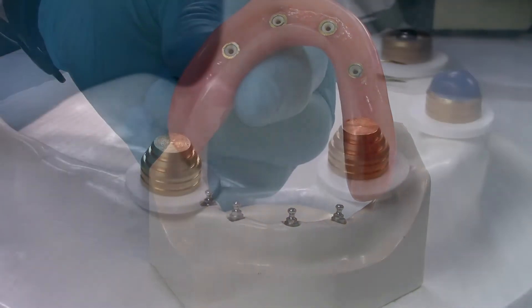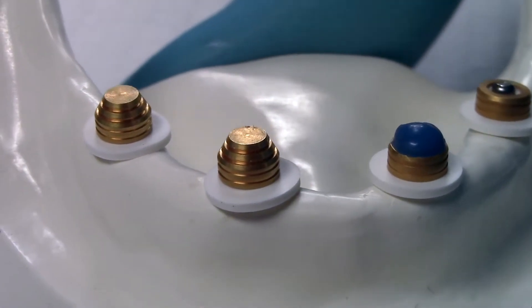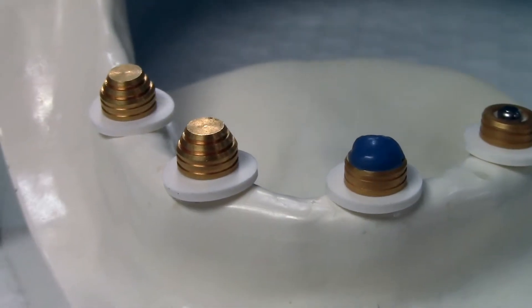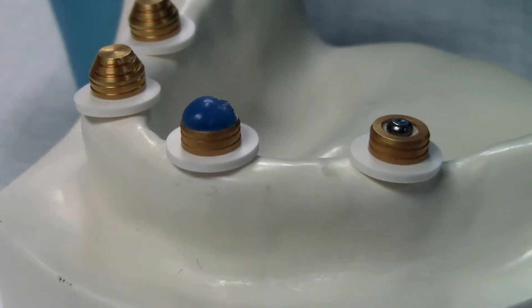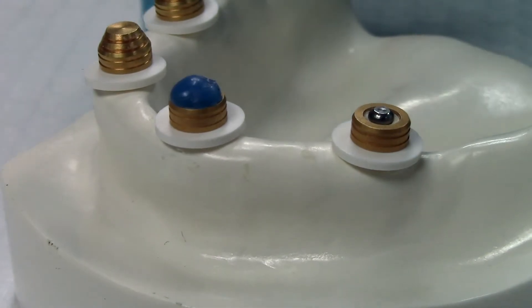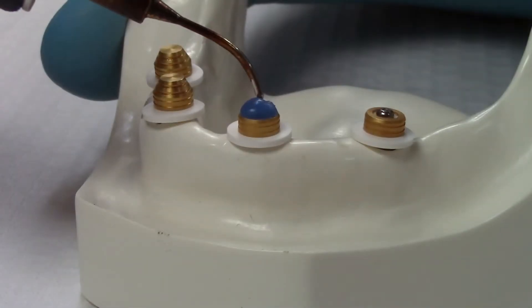With outstanding support comes versatility. Aside from being compatible with over 180 implants with multiple cuff heights, the ORA system offers the choice of a closed retention cap or an open retention ring.